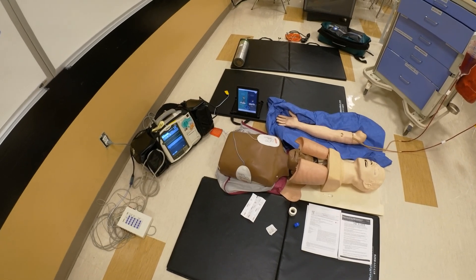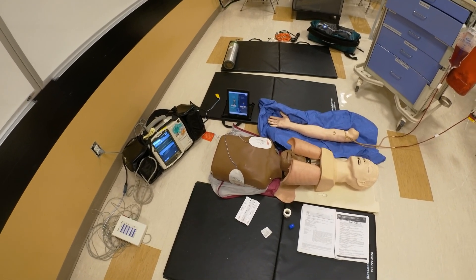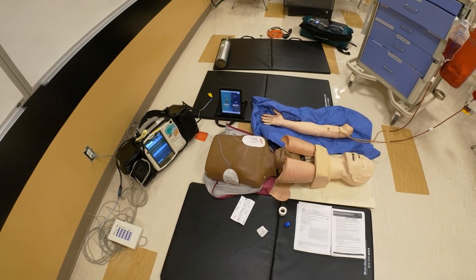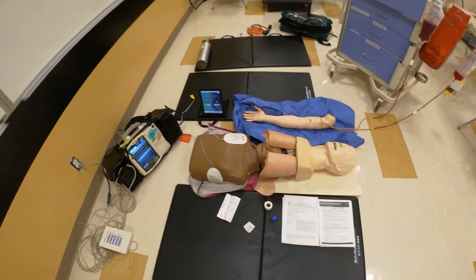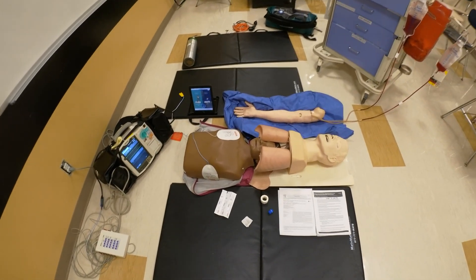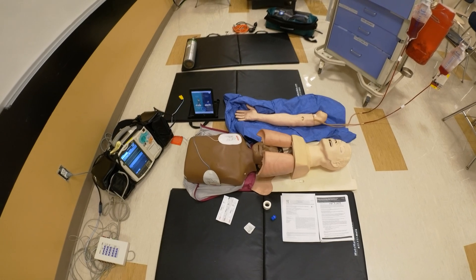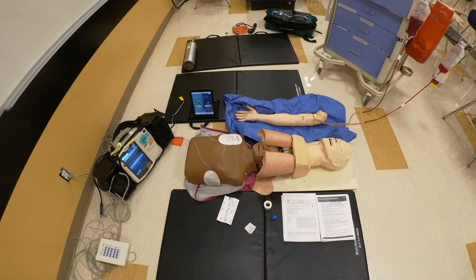Hello, my name is Nikolai Yusupov, and in this video I'd like to show you how to set up your station for Megacode practice or testing, or AHA Megacode practice or testing. You notice that I have a couple of test trainers that I put together in order to simulate a Megacode station.